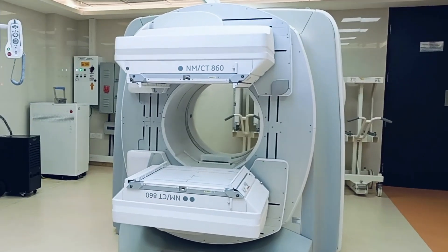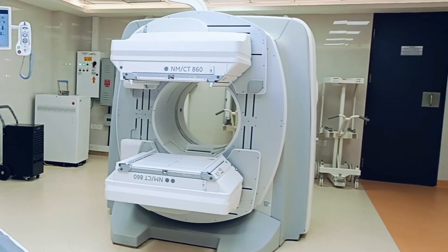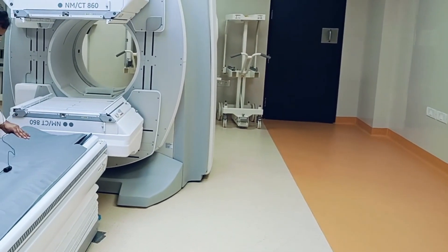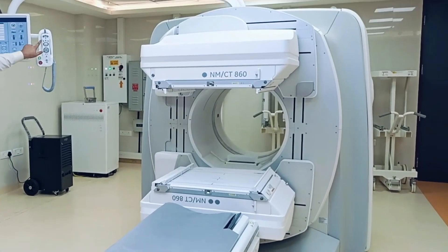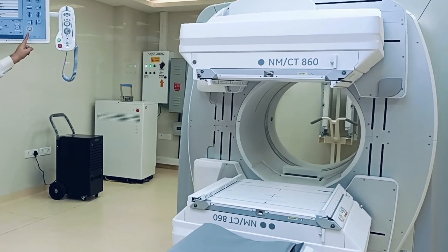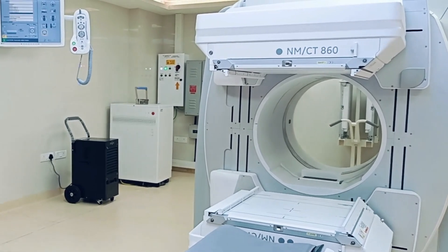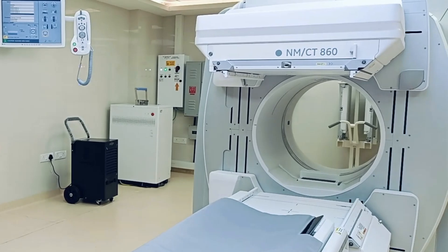To go to CT mode, first shift the table and ensure it is locked properly, then scroll down, select CT mode, and press set. This is for standalone CT, not SPECT-CT — CT only. In this mode, the table will position itself to perform CT scans only.